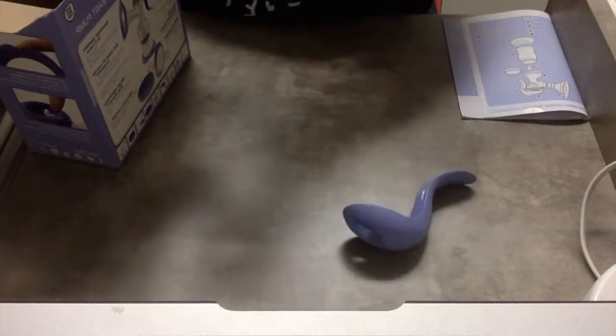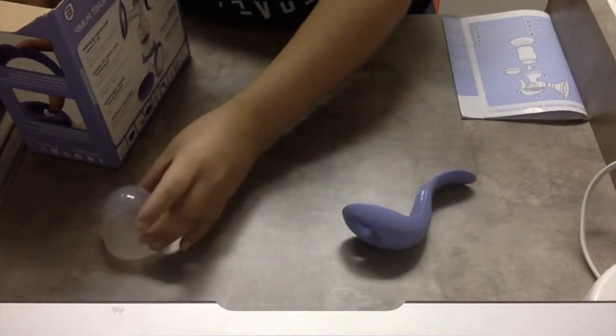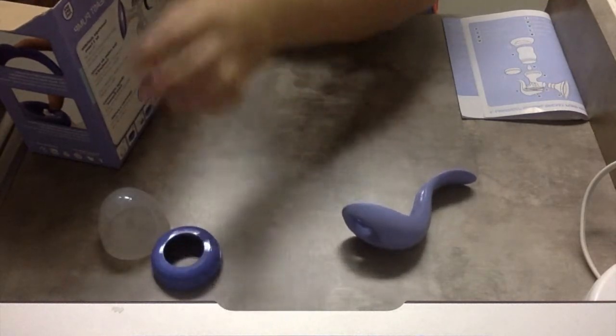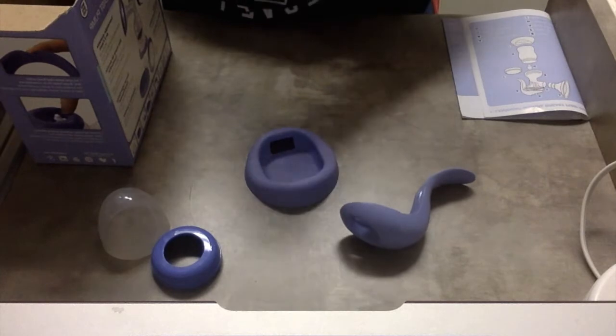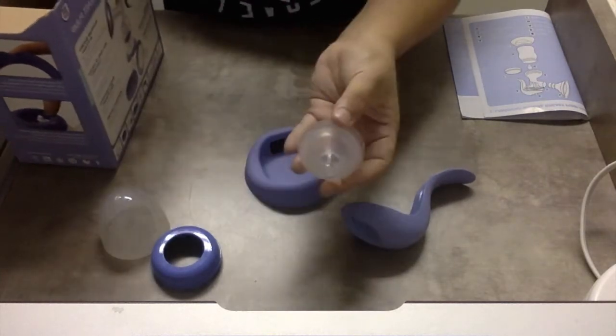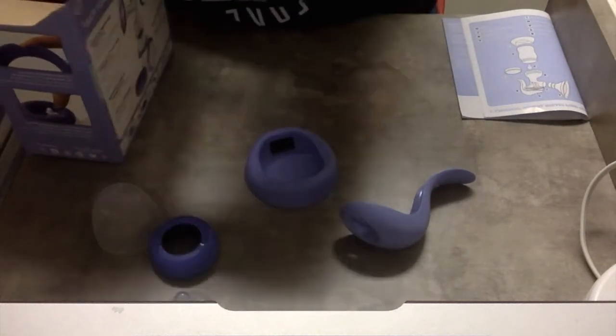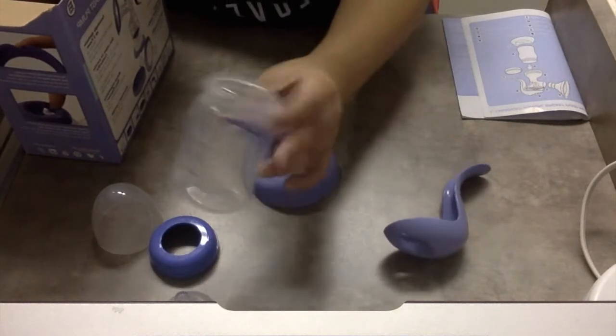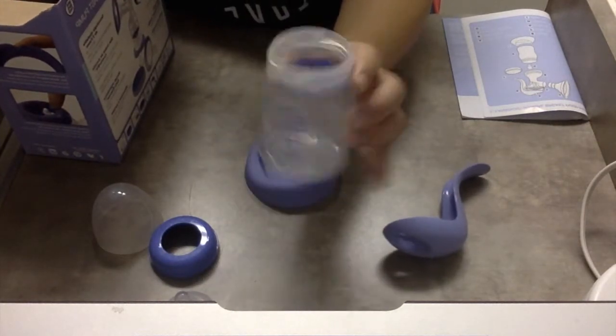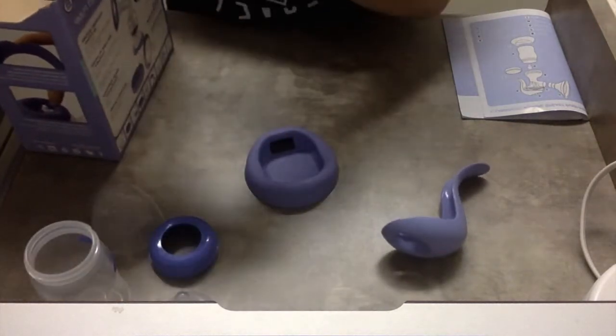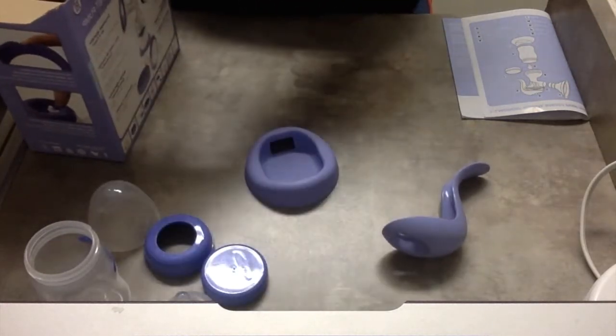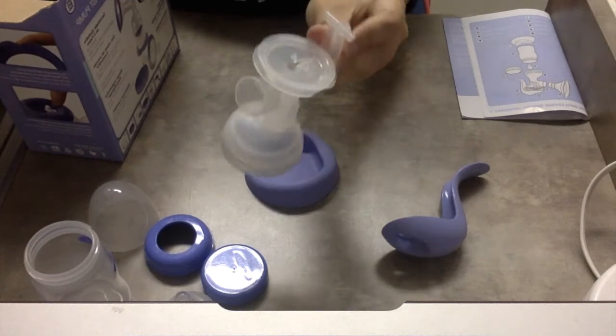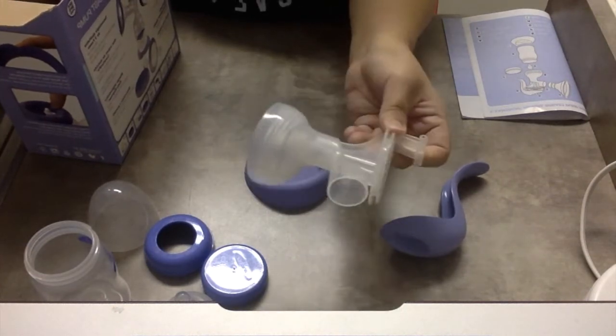Here's your handle for your pump and then here's a bottle lid, a bottle collar, and here is the stand to put your bottle in. Here's the nipple that it comes with for the bottle. It's the actual bottle, a five ounce bottle. And then here's the bottle lid, just a closed lid, and this is the flange body.